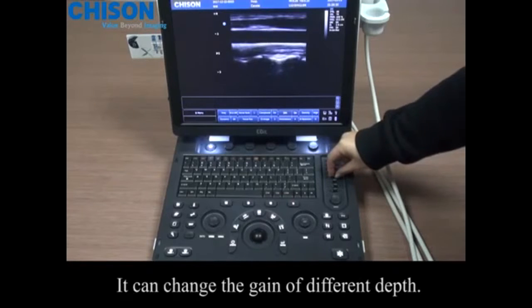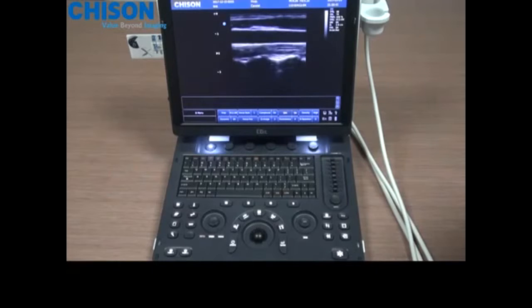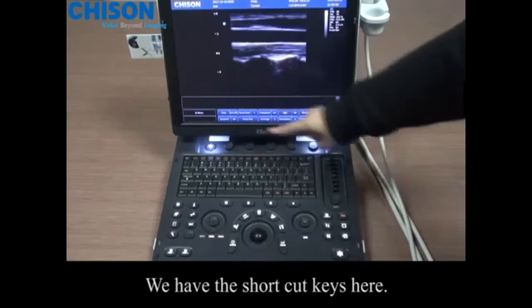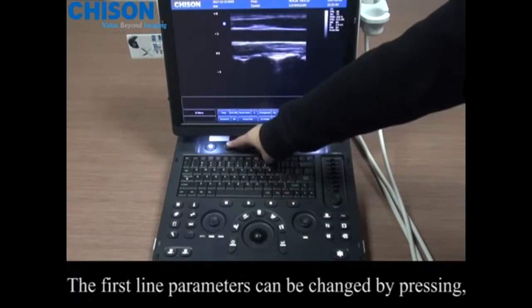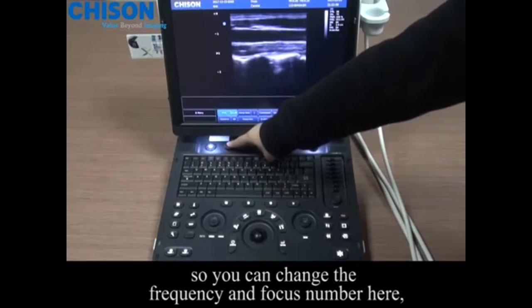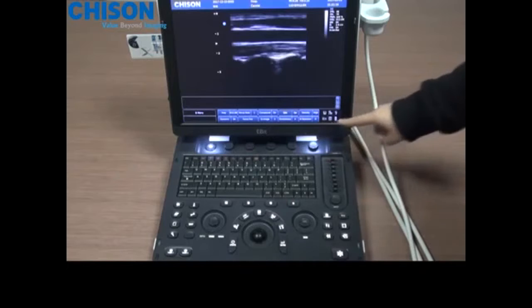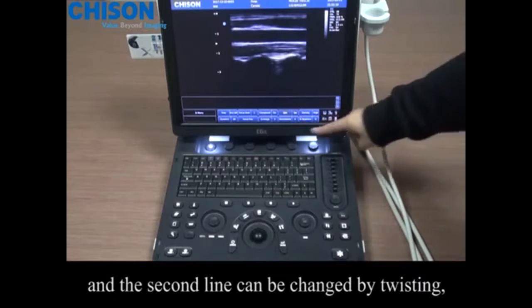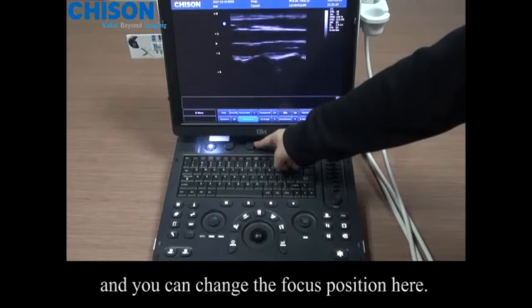TGC, from top to bottom, it has 8 selections. It can change the gain of different depths. We have the shortcut keys here. The first line parameters can be changed by pressing. So you can change the frequency and the focus number here. And the second line can be changed by twisting. And you can change the focus position here.